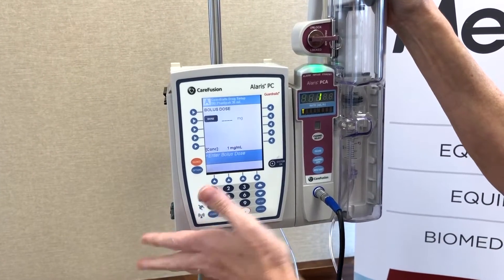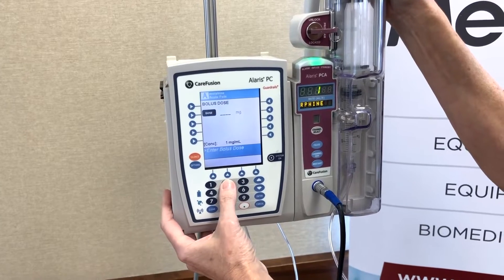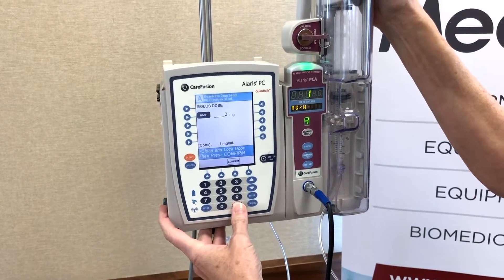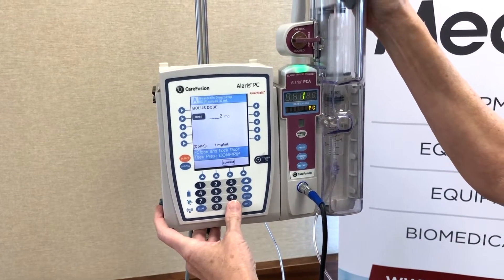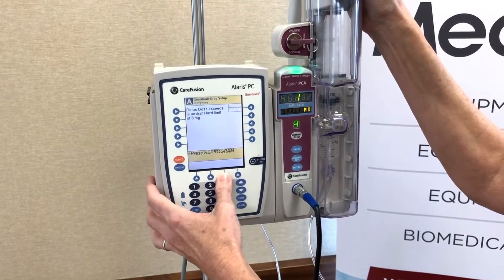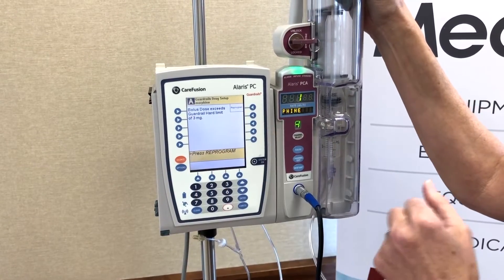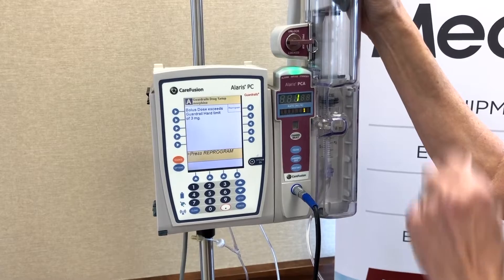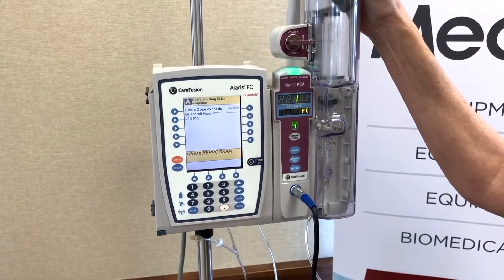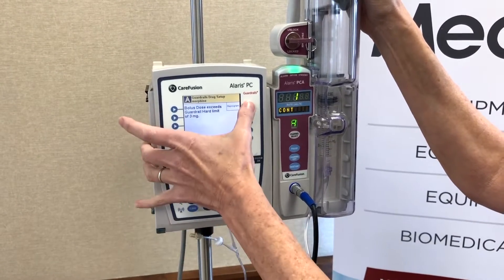I'm also going to show you how the guardrail safety software works, should I make a decimal or key press error. I'm going to think I'm hitting 2.5, but I'm accidentally going to hit 25. This is an example of where pharmacy can set a hard stop — meaning I can't do anything except reprogram the pump. Nothing past 3.